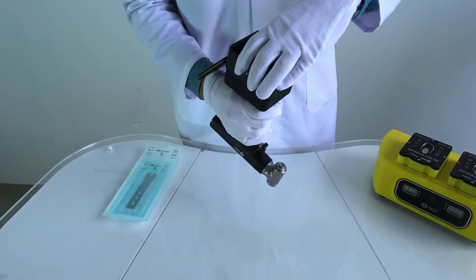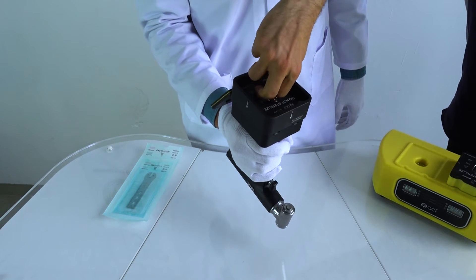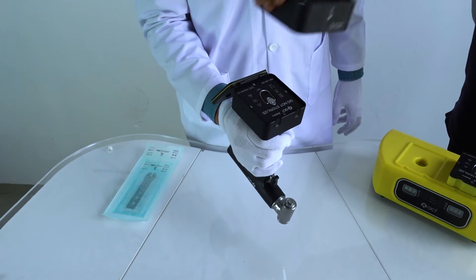The person who attaches the sterilization guide needs to be sterilized. The other person who puts the batteries in and takes the guide doesn't need to be sterilized.